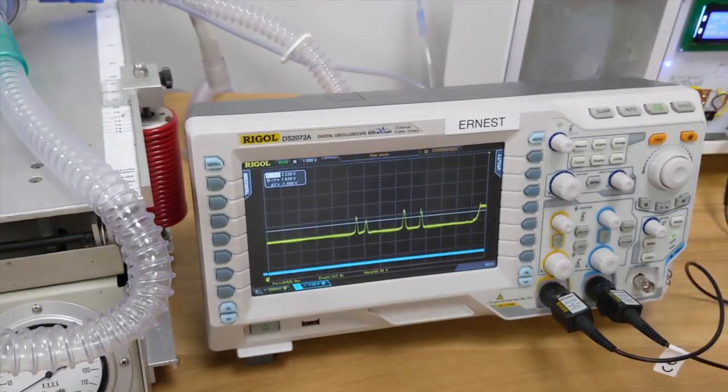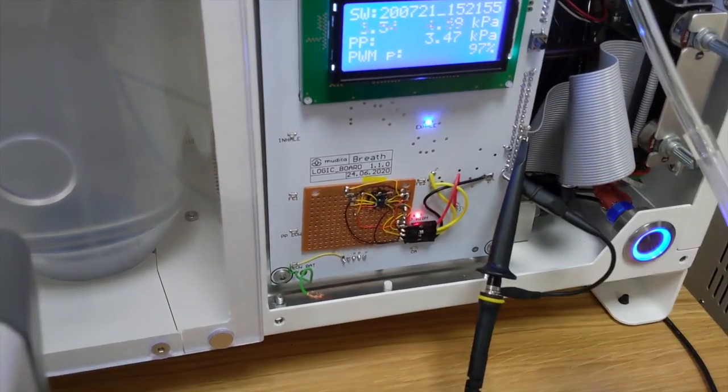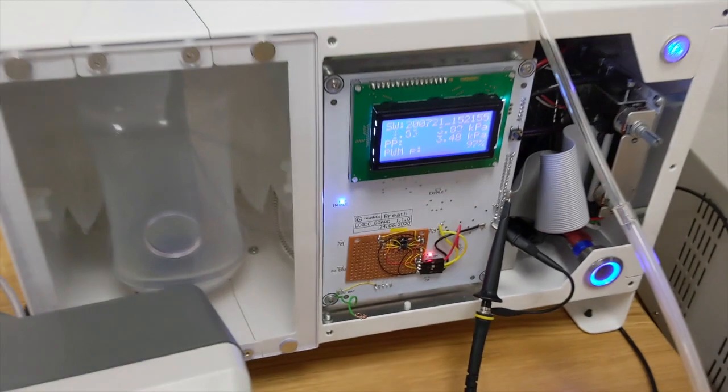By long-term signal, we are triggering the high pressure alarm.